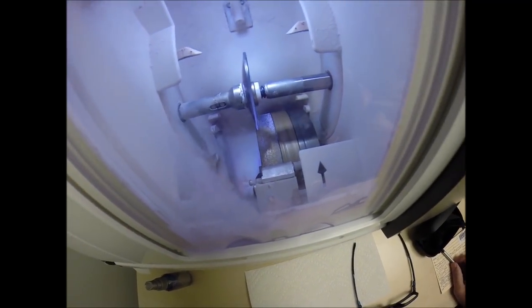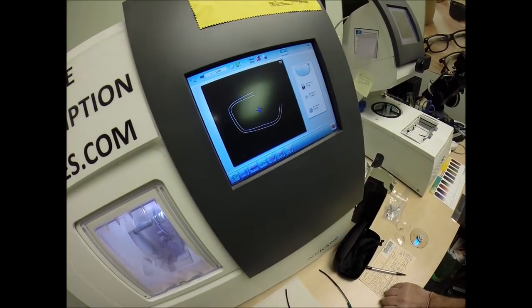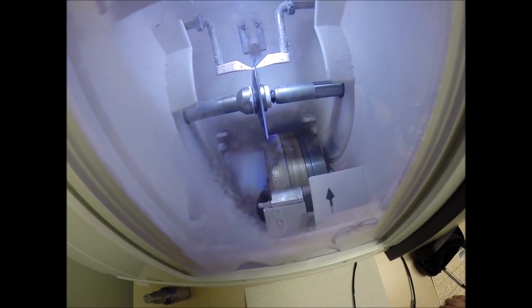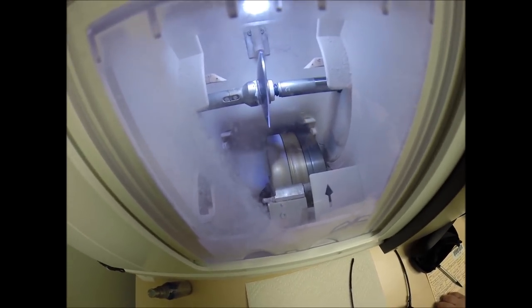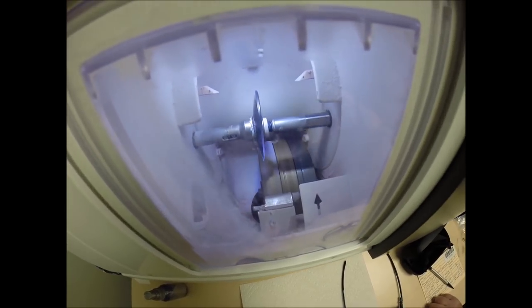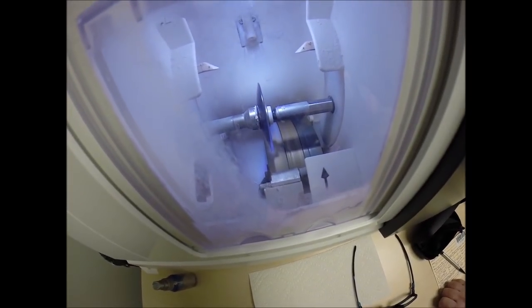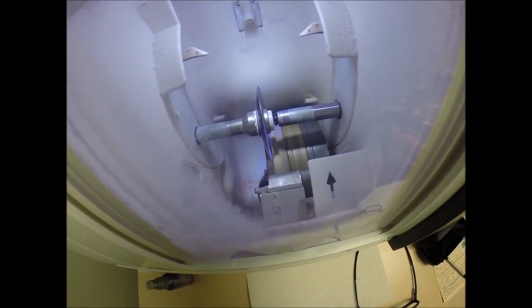Hit the green arrow to start. The door closes. The clamp shuts. The lens is going to be traced by two wide styluses, making sure that it's large enough to fit into the frame. The old carpenter's saying measure twice, cut once. It's measuring the thickness of the lens at every point to know exactly where to place the bevel.